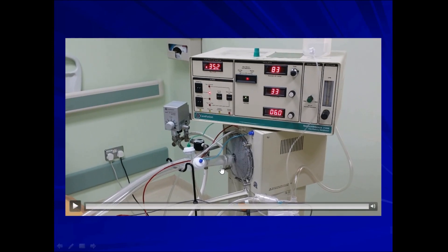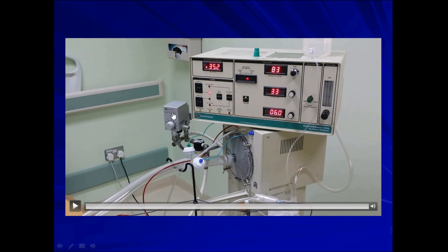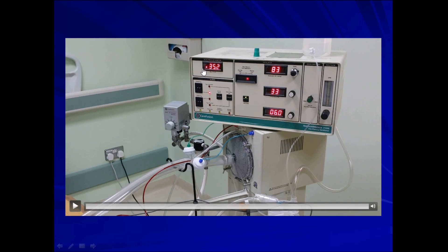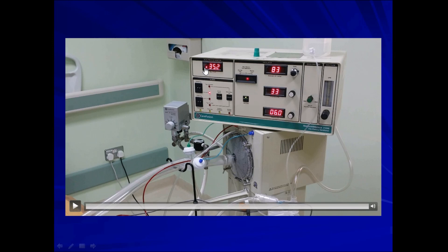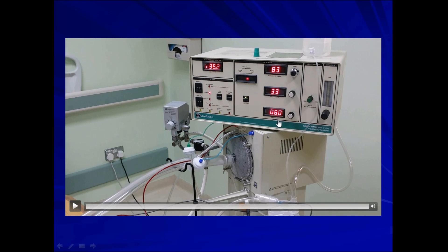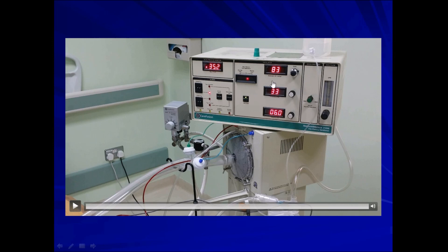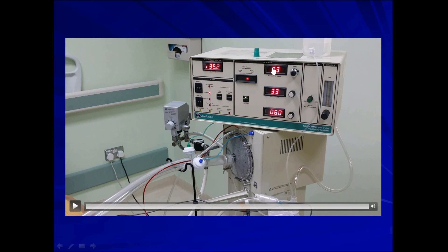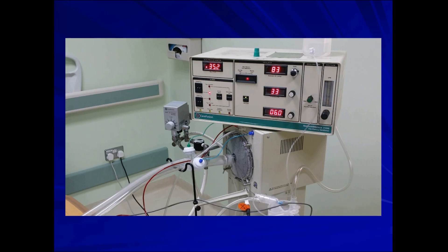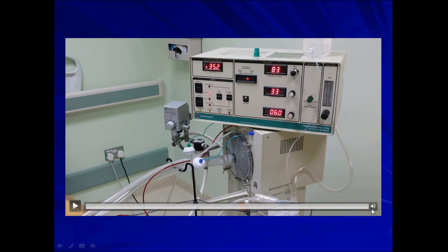It's a noisy device. You can check the settings. Here we can decide the FiO2, the mean airway pressure, the frequency, the inspiratory time percentage, and the delta pressure or the power or the amplitude. Here we can also decide the bias flow.